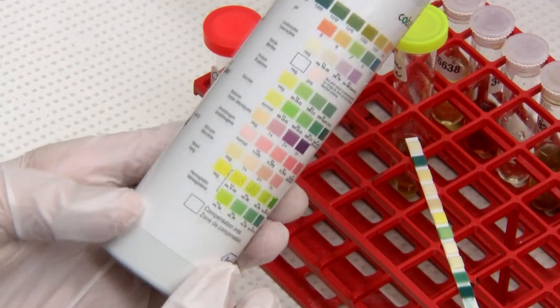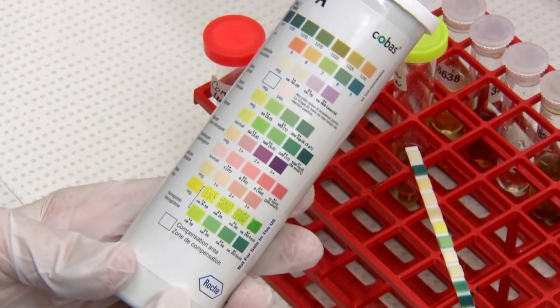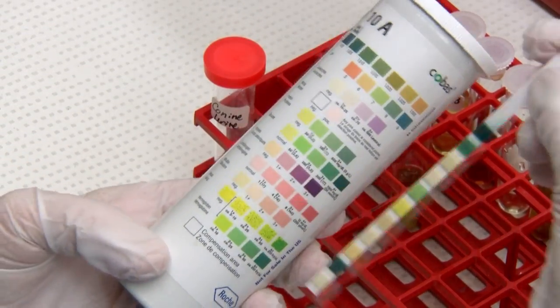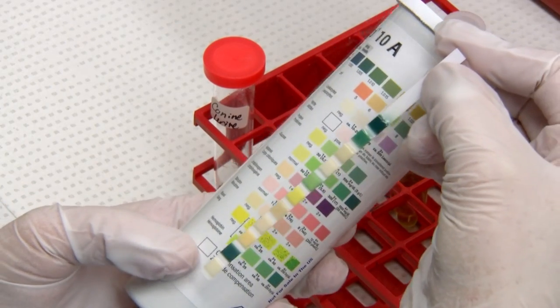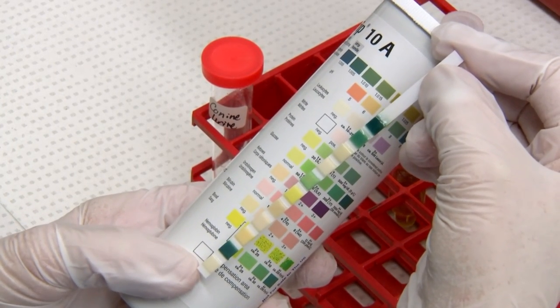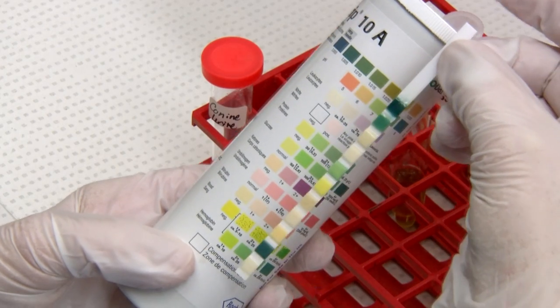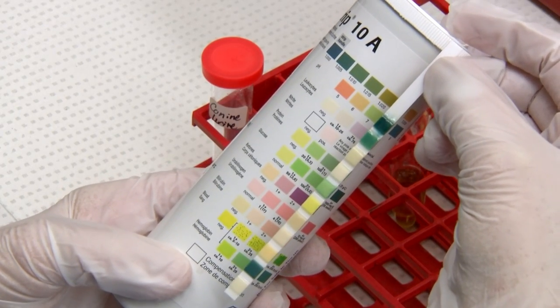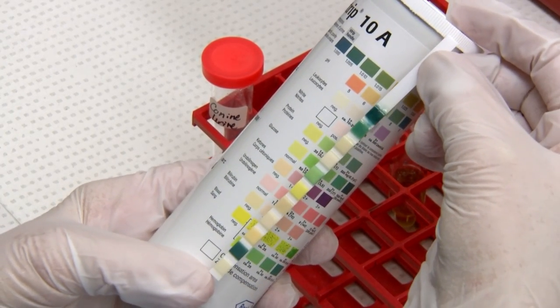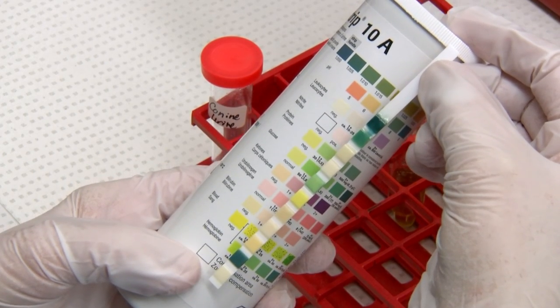We use a Chemstrip 10A, which is designed for an automatic strip reader. The very last square on your strip corresponds to the blank square at the bottom of the strip container. You hold your strip with the handle at the top by the lid, and that last square corresponds to the blanking square at the bottom.